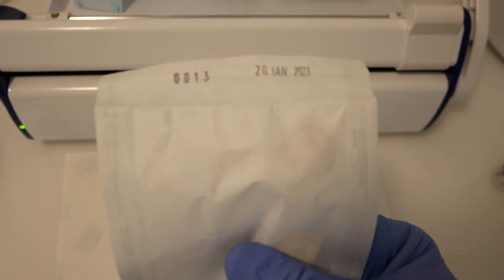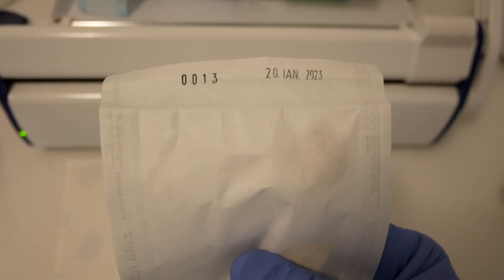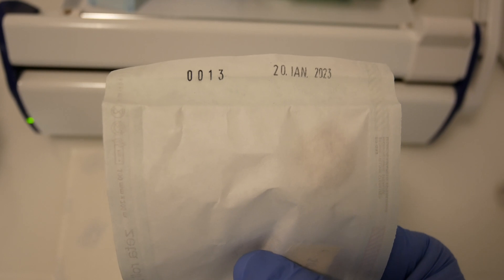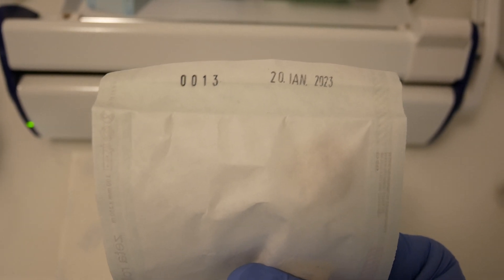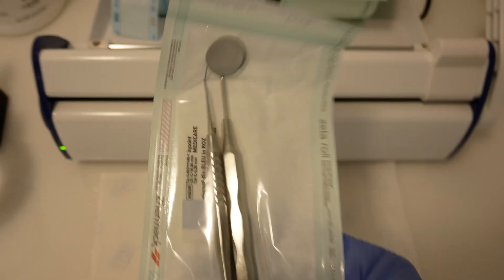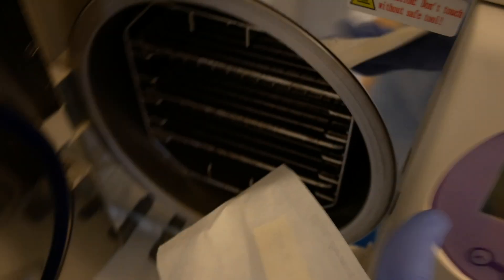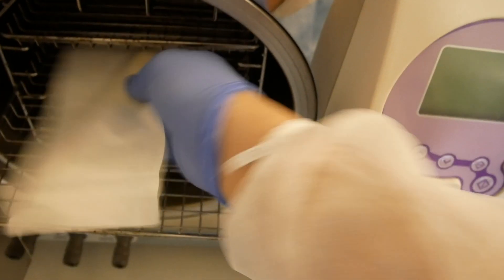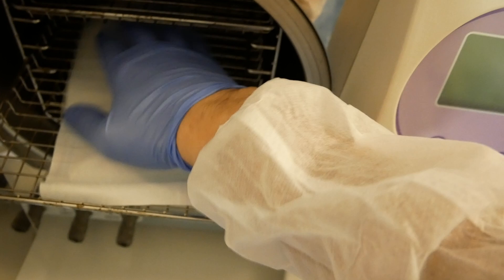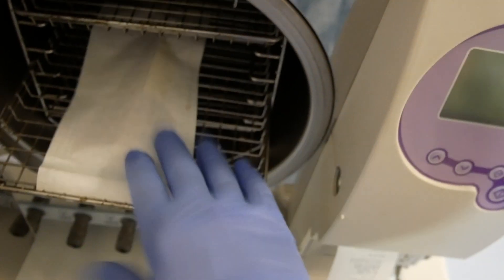The lot number, the packaging lot number, and the packaging date. Okay, and this goes into the autoclave. Be sure not to overload your autoclave.